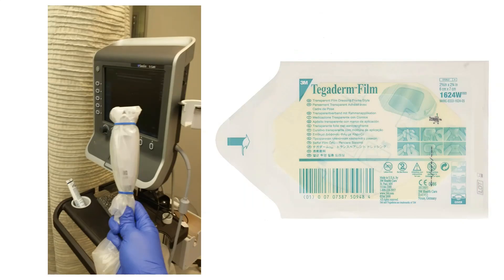Next you need probe protection. You need to cover the probe to protect the probe from the patient and the patient from the probe. For example, if you've placed an IV in patient A and you're going into patient B's room, you'd be carrying pathogens from patient A unless you appropriately wipe down the probe and remove any covering. There is a full sterile cover that's used. You can also use Tegaderm, though that's not typically recommended. Condom probe covers work just fine.